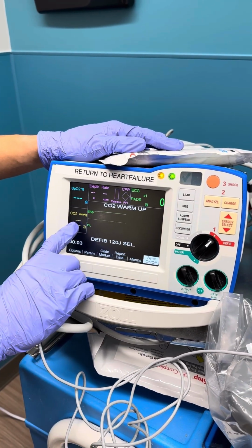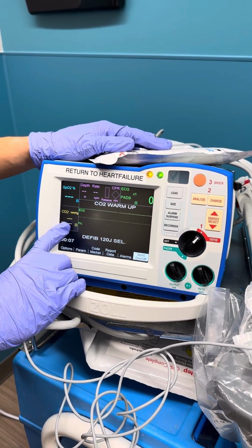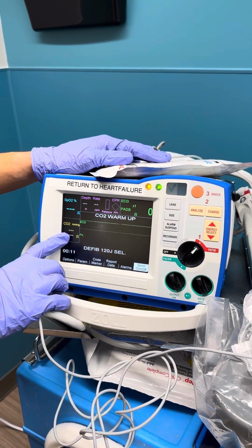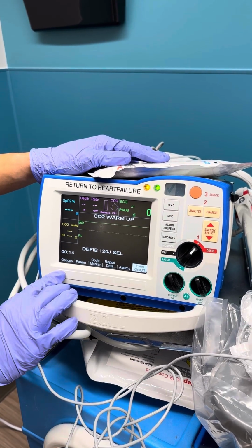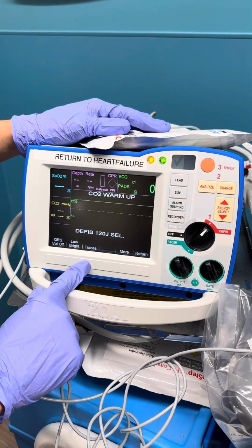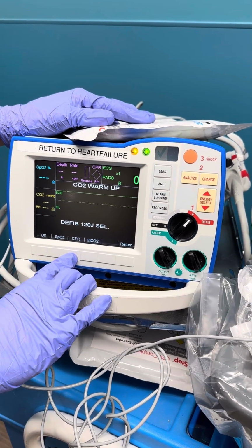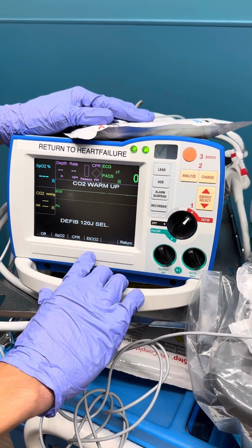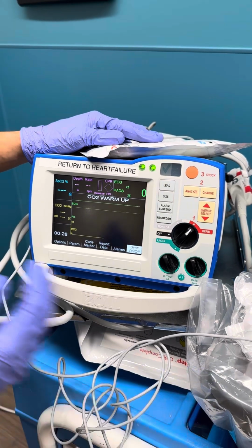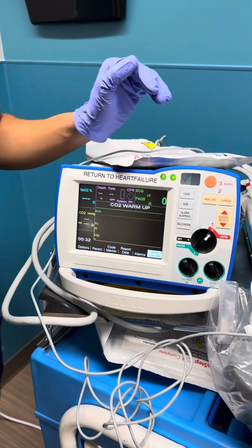Now we'll be able to see an end-tidal CO2 reading here in the box, but we can gain more information if we're able to visualize the patient's end-tidal CO2 waveform. To get that to display, you're going to click the options soft key, click the traces part here, and then the best place to put that tracing is trace 3. You'll click end-tidal CO2. Right now I don't have this attached to a patient, we're not actually ventilating anyone, so our waveform is flat.